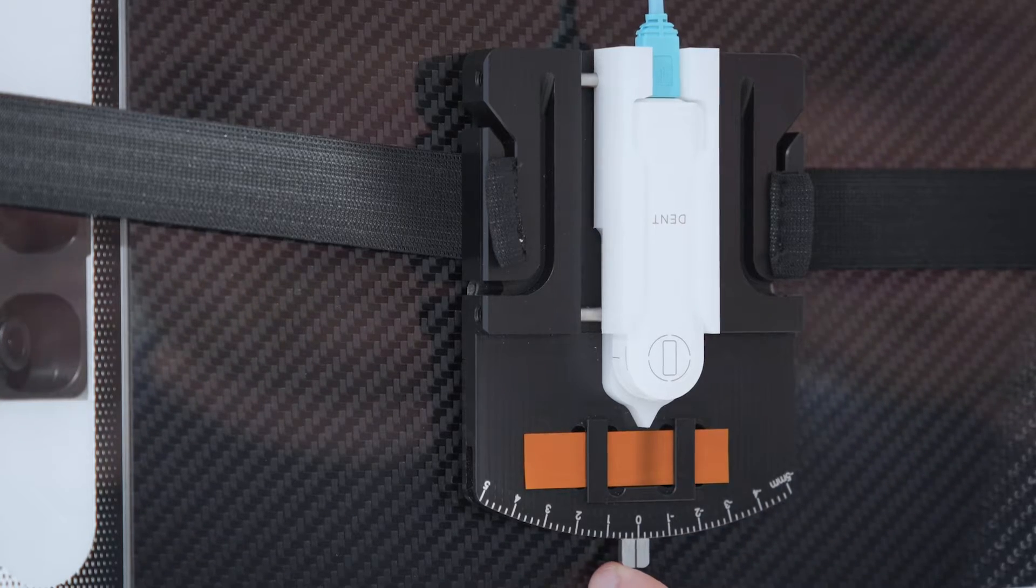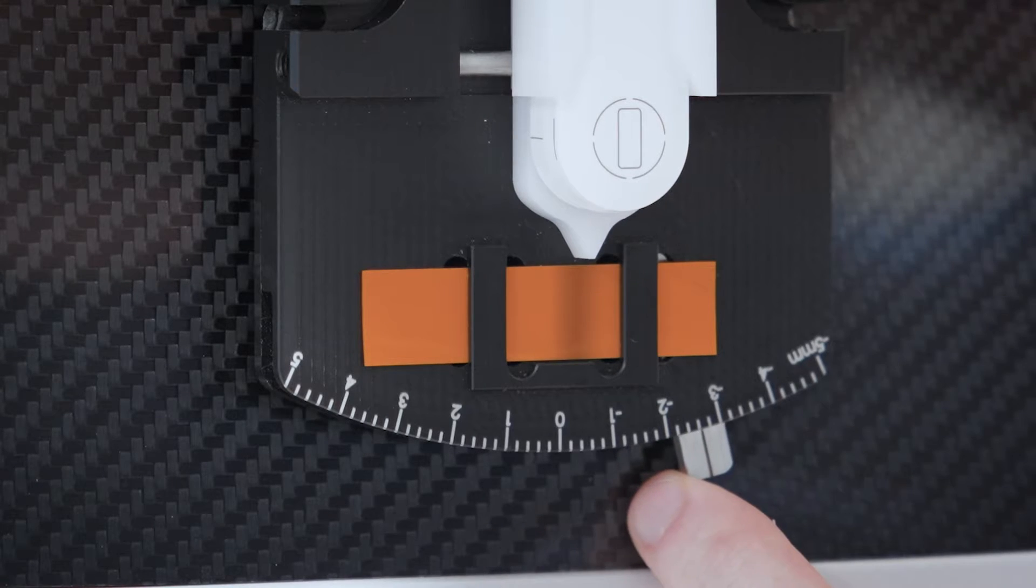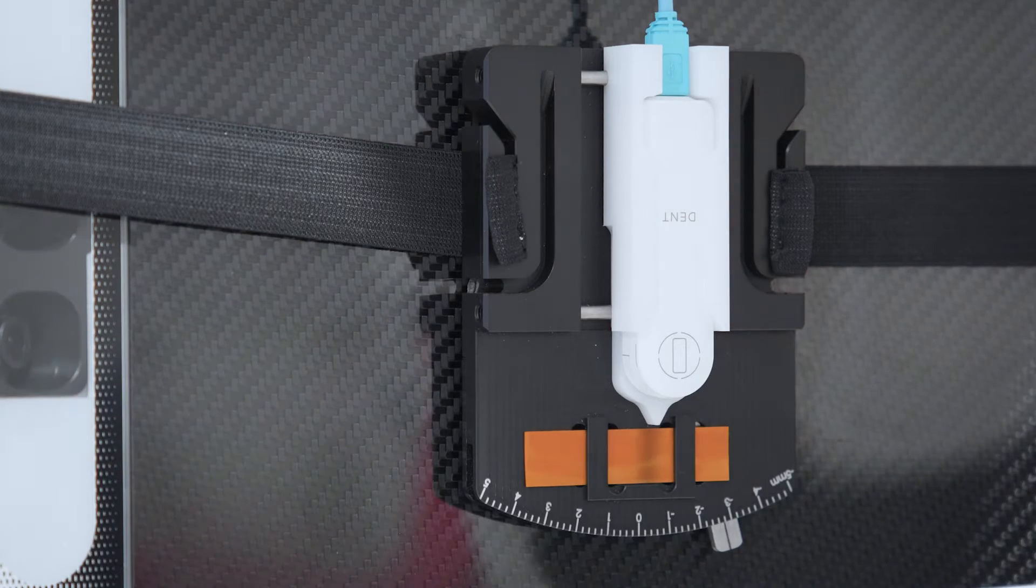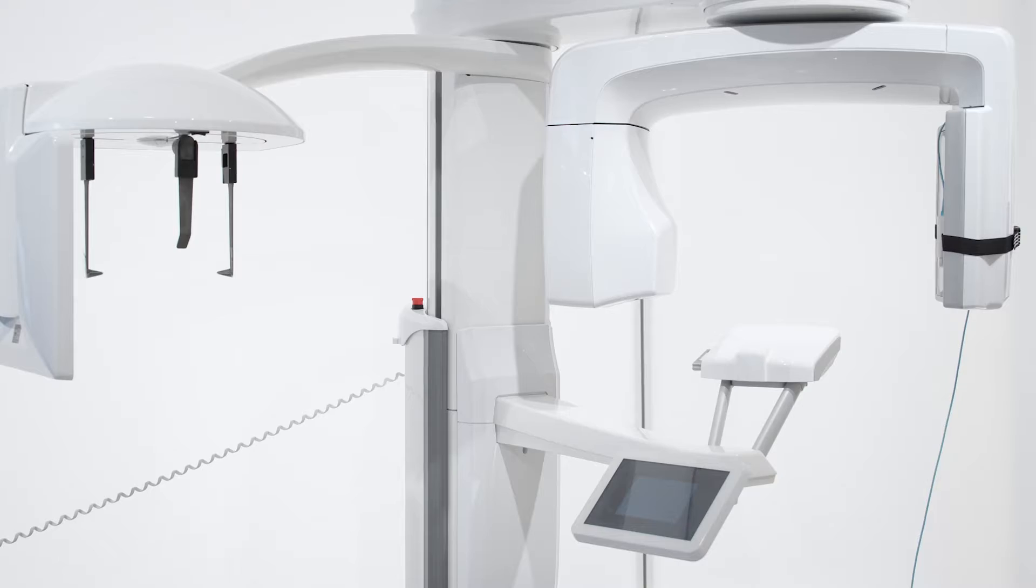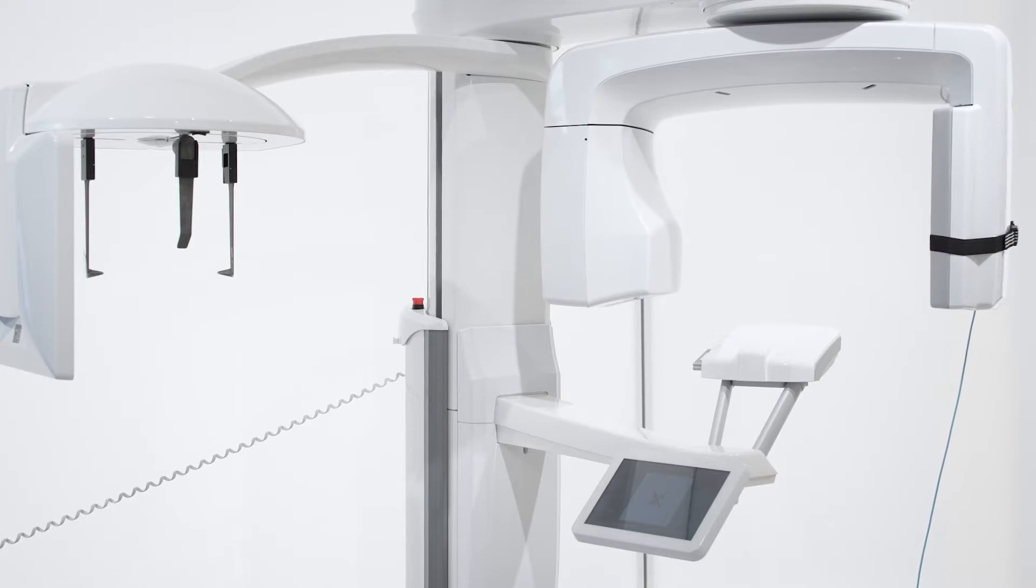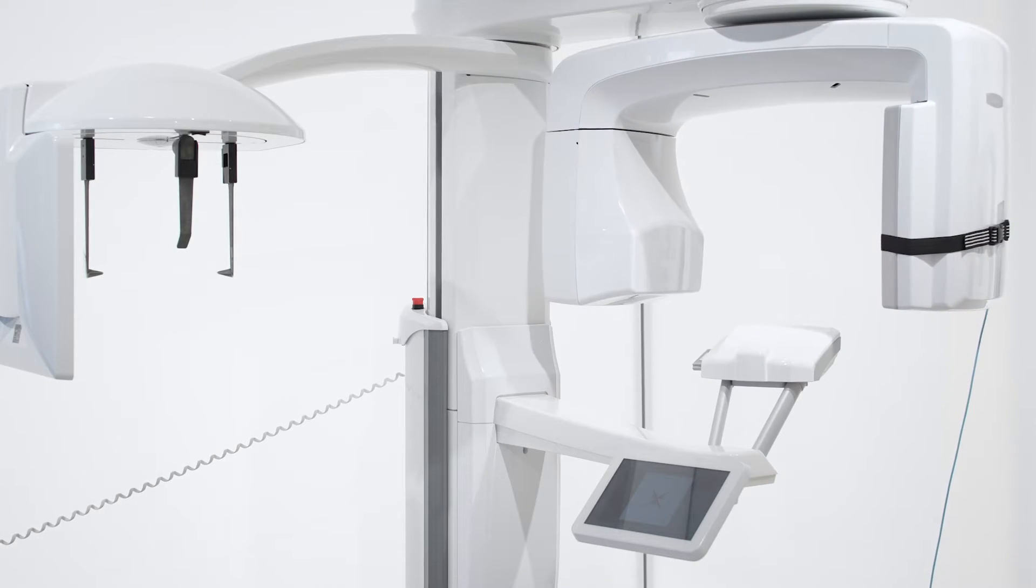Let's adjust. We can use the lever on the holder to move the sensor more towards the center of the exposed area. Let's check again by measuring. Note that the center position can be as sensitive as 0.1 mm.